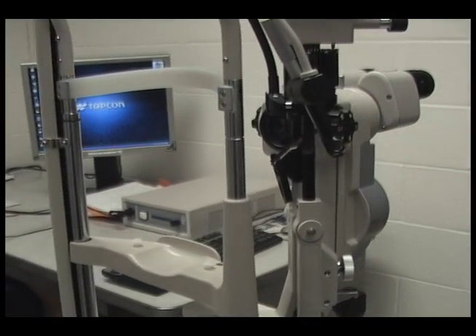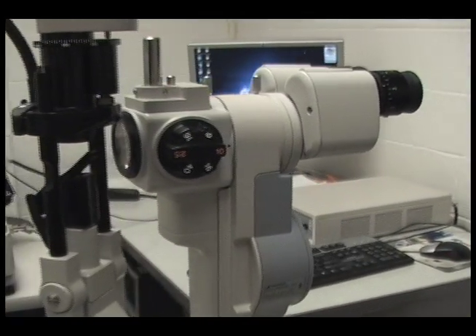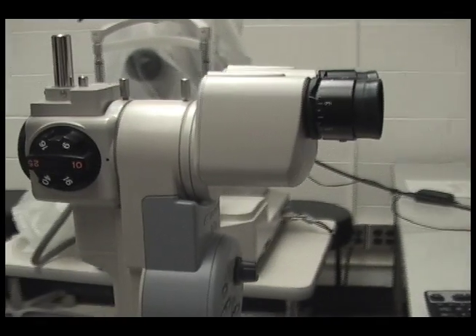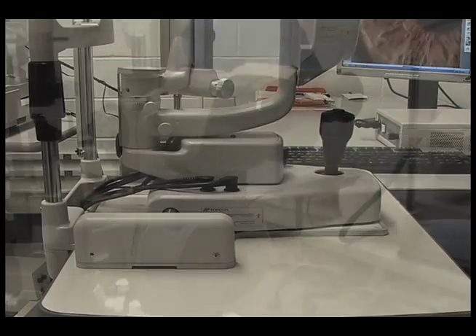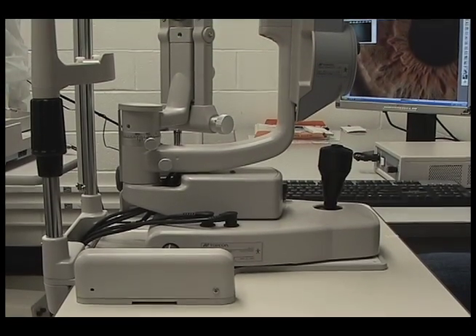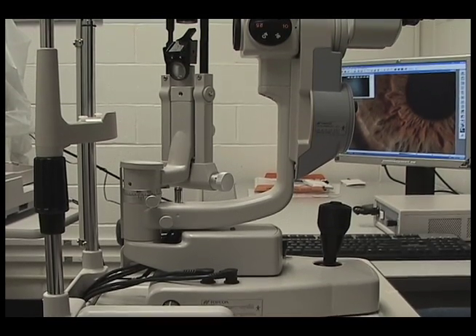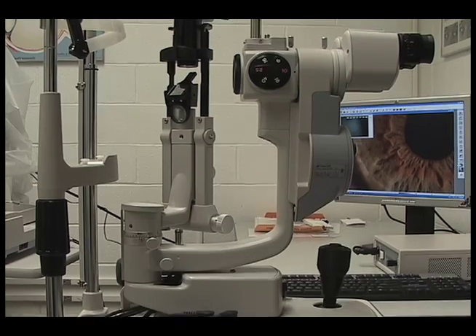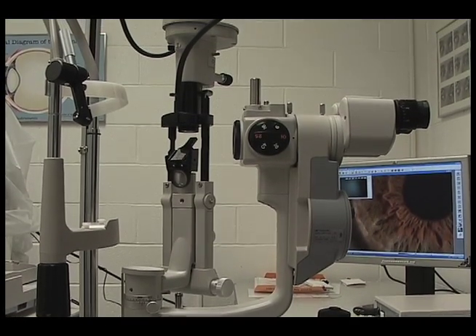Slit lamps are used by optometrists to recognize and diagnose various corneal and anterior segment disorders. The only difference between what they use and what we use is that we have a camera and beam splitter attached. In this sense, what the doctors see and what you see can be identical. The main difference is what you as a photographer can do to go beyond simple documentation.